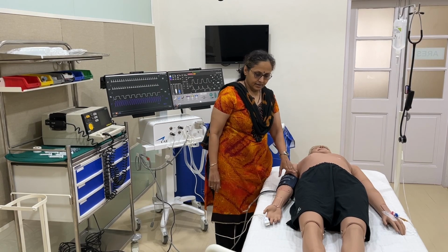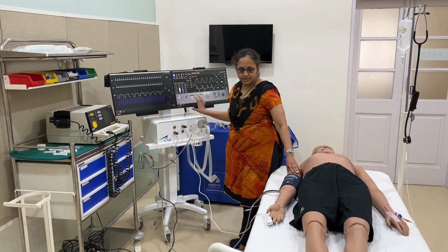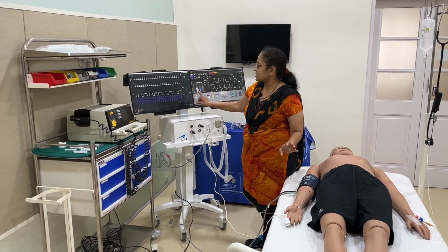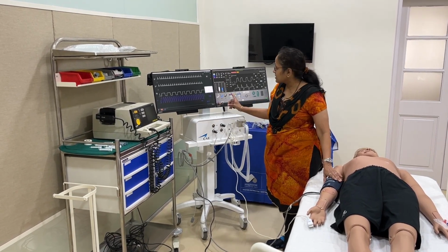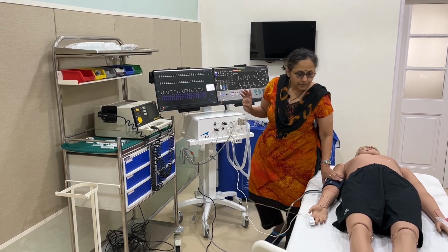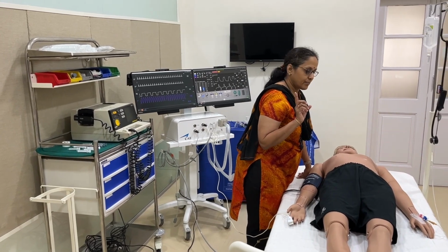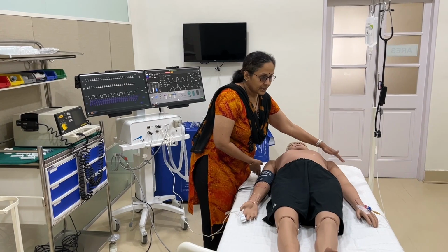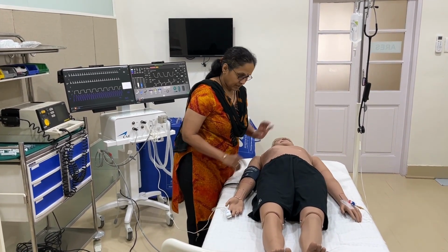Okay, and this is our monitor and this is our workstation. On the monitor, when we attach the pulse ox probe, we get the saturation and the pulse, the heart rate, and BP readings we get when we attach this NIBP. And IV can be taken. There are points for intramuscular injection. For IM injection we have got a point, and IV can be taken on the dorsal aspect of the hand on the left side.